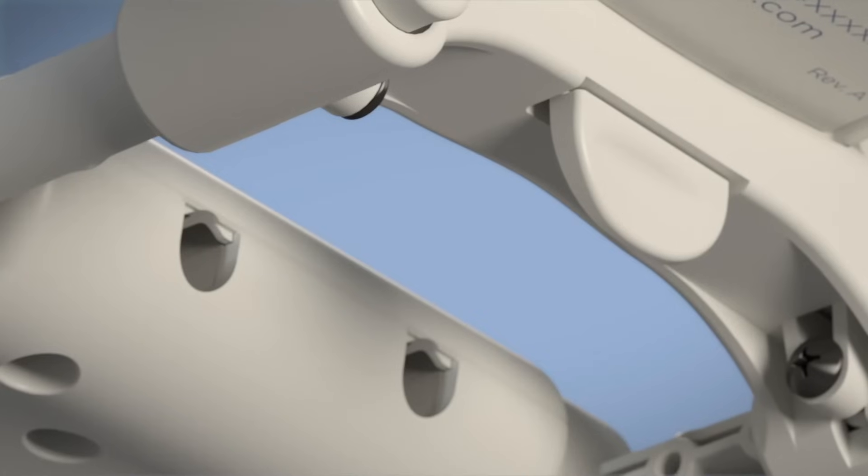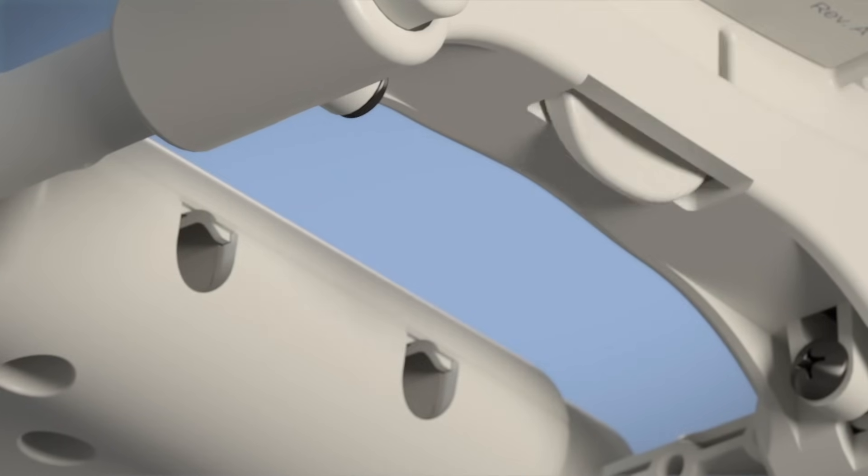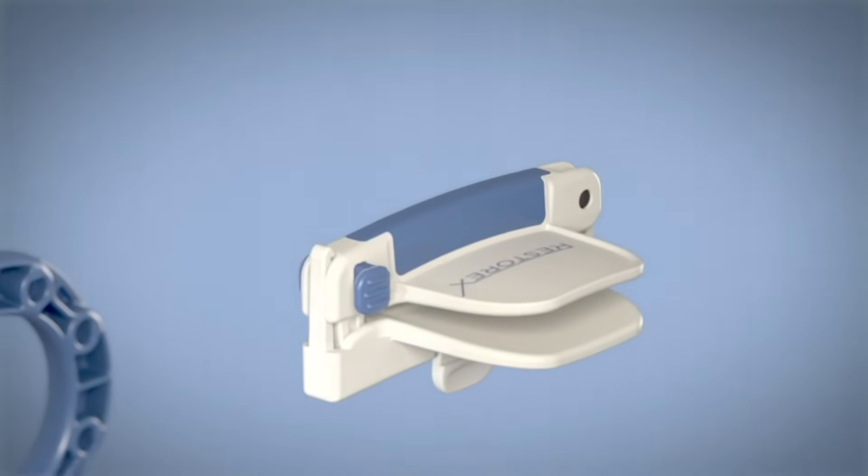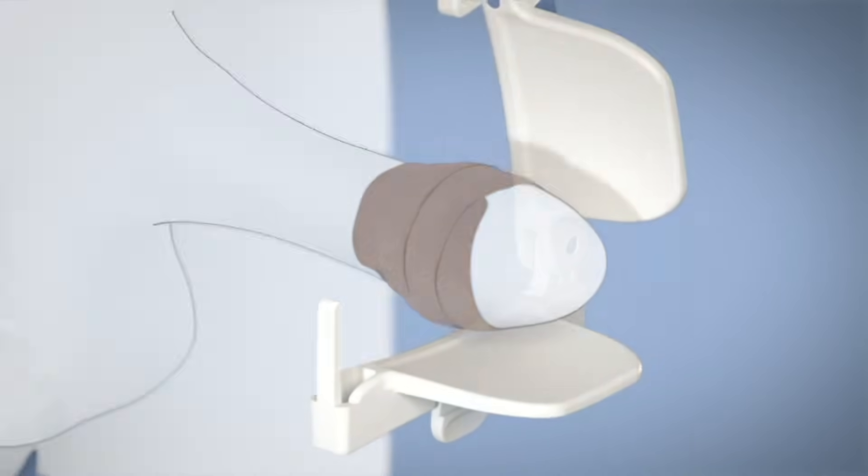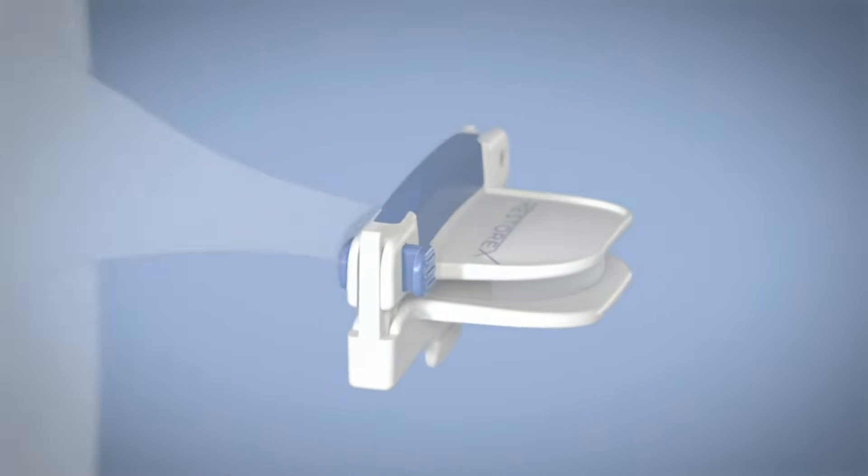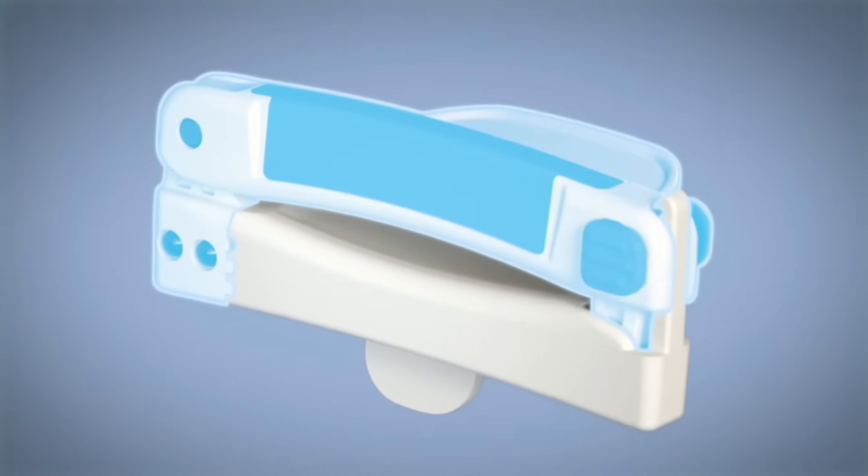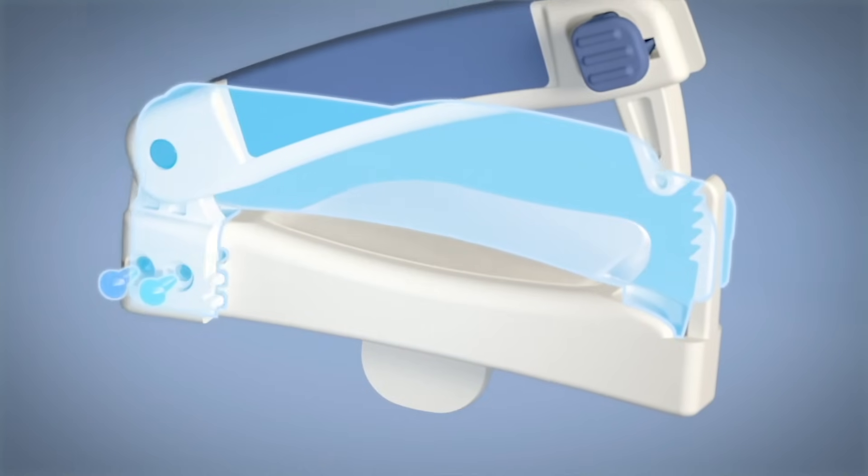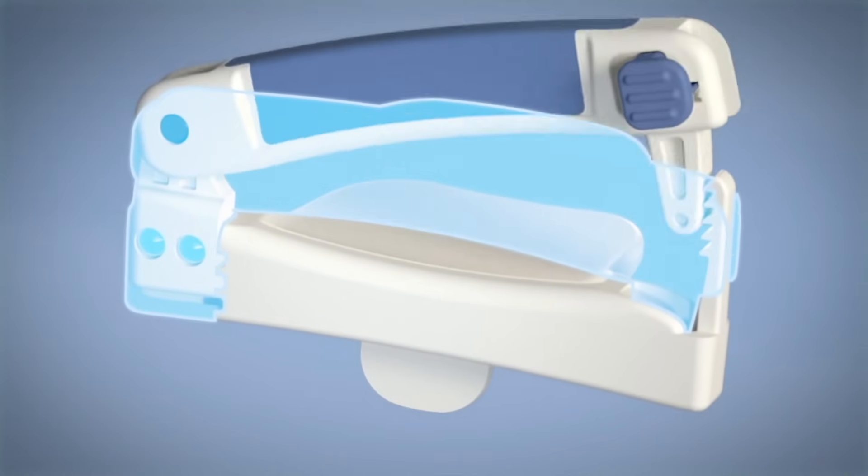Now, to complete the setup, push the clamp release tab and remove the clamp from the housing. After opening, place your wrapped penis in it, as shown. If you cannot close the clamp, or with it closed you do not believe you can comfortably wear it for 30 minutes, adjust the height, as shown.